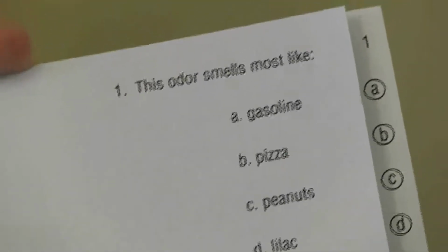It's very important that the patient gives an answer even if they smell nothing, or if they're not sure that it smells like any of these items. That's called forced choice testing, and it's very critical because it allows us to detect malingering. It forces people to be very careful in trying to do the best they can in identifying an odor. For other reasons too, we've found this is a much more reliable approach to this kind of testing.